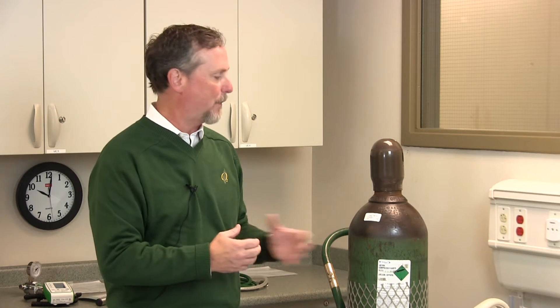That makes sense because if there's 20% oxygen in the tank, the bottom of the blender goes to 20%. And if it's a 30% tank, the bottom of the blender goes to 30%. That way the blender is calibrated correctly for the tank.